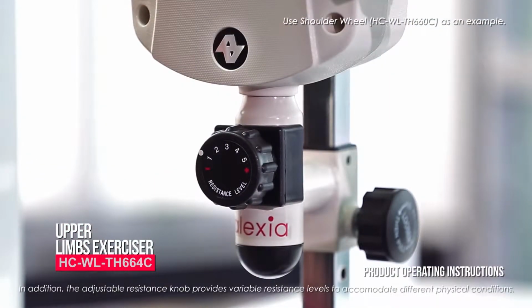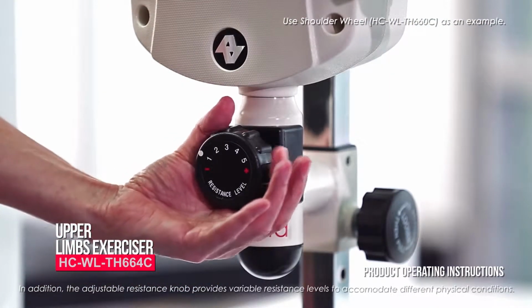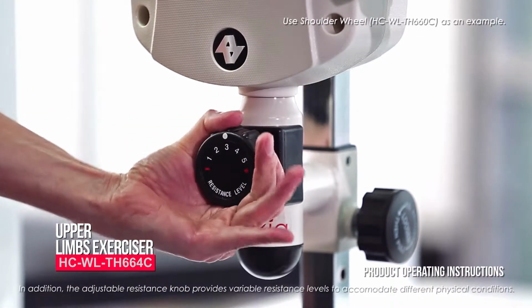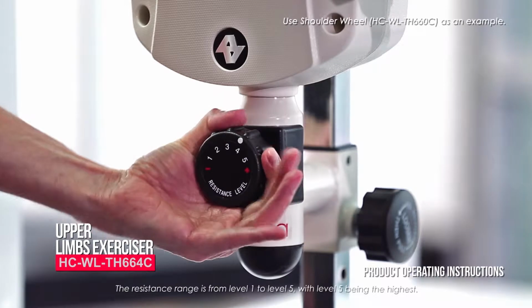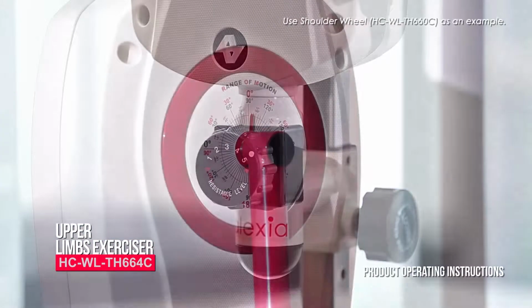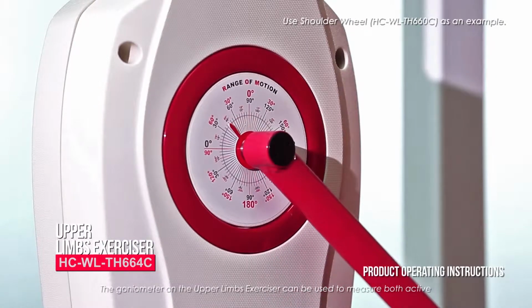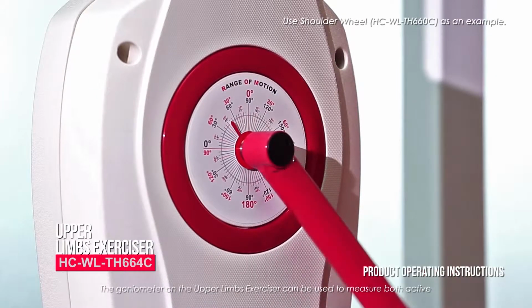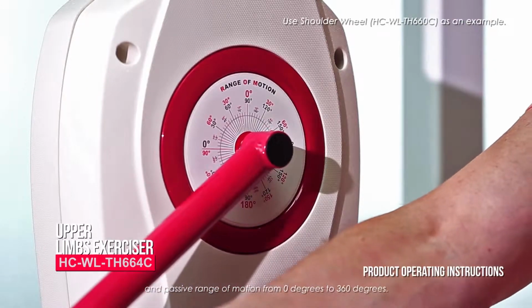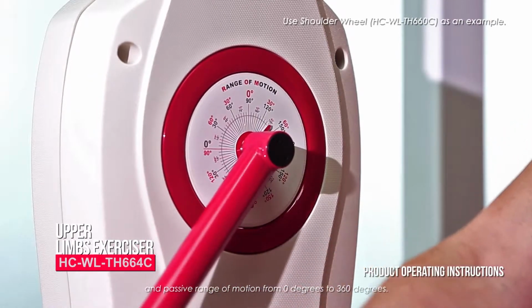In addition, the adjustable resistance knob provides variable resistance levels to accommodate different physical conditions. The resistance range is from level 1 to level 5, with level 5 being the highest. The goniometer on the upper limbs exerciser can be used to measure both active and passive range of motion from 0 degrees to 360 degrees.